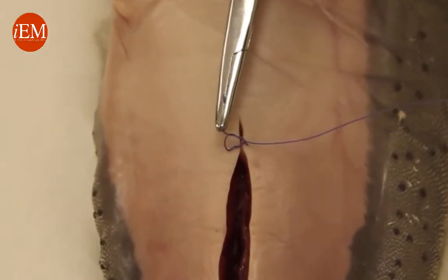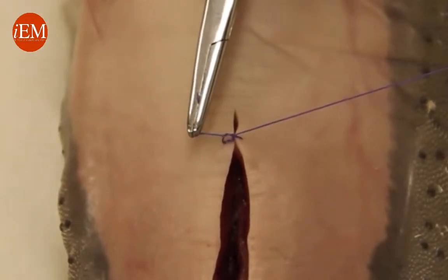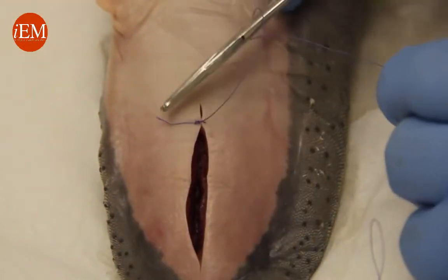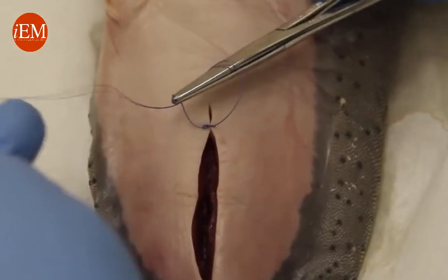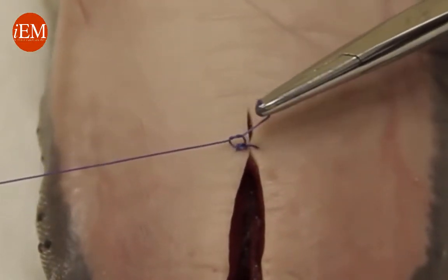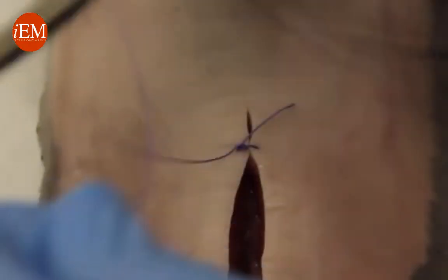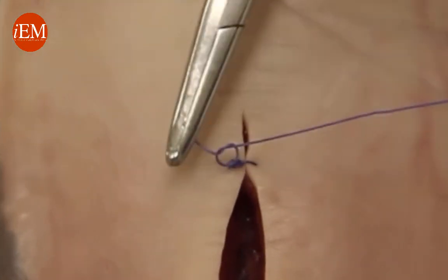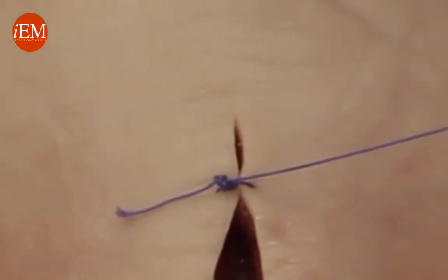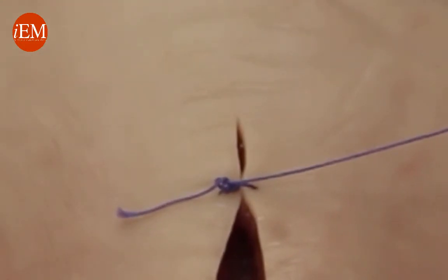But you have to pull away to the other side with your driver. Again in between, wrap once — you can see how it comes down flat. Last one: one towards you and one away from you. Again it comes down flat, and you have two square knots.